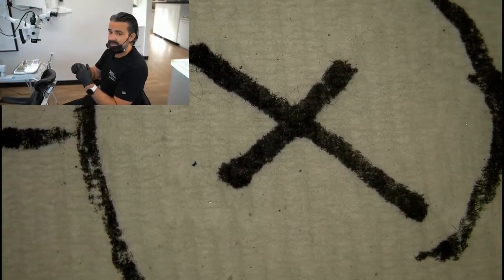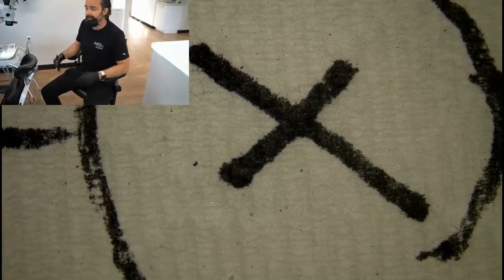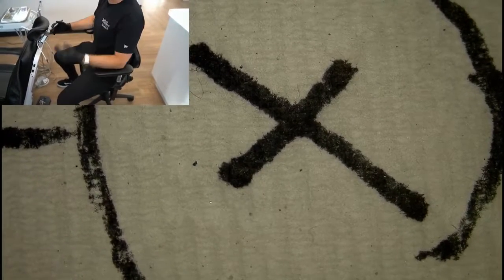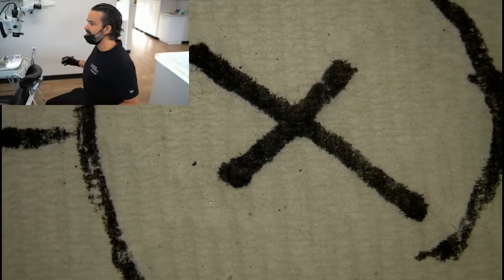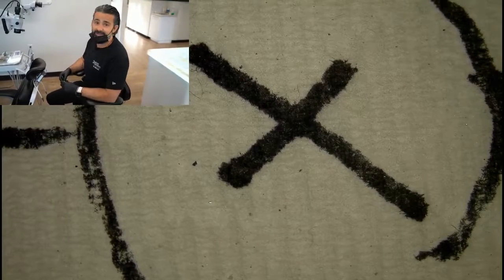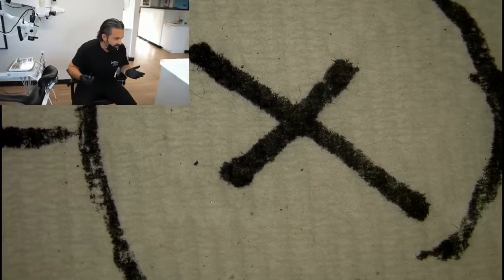The other thing is what you see my elbows on. These armrests are paramount. You can sit down and having your arms sort of like this, taking the pressure off your rotator cuff, and in a nice position, it just kind of keeps things moving. And when you go around the chair, you're just actually using your rhomboids. Most people have neck problems, but when you fire your scaps through your rhomboids, you just really don't develop back problems. That and a little bit of Pilates is a must every morning. Anyways, so that's posture.